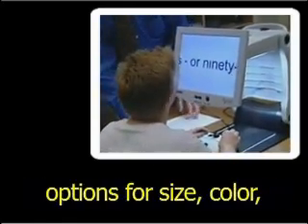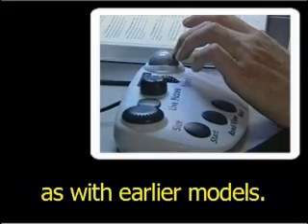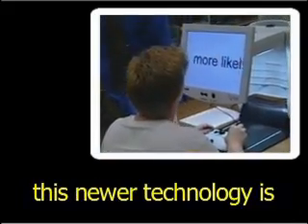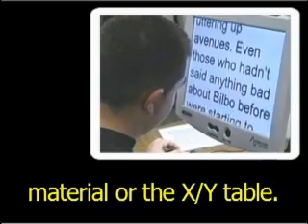The user has the standard options for size, color, and positive-negative image viewing as with earlier models. The added advantage of this newer technology is that the user does not have to manipulate the viewing material or the XY table.